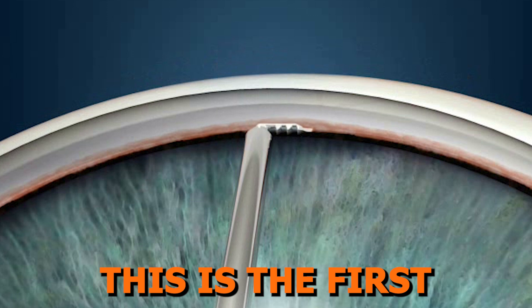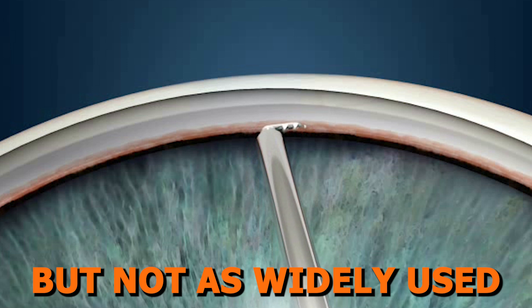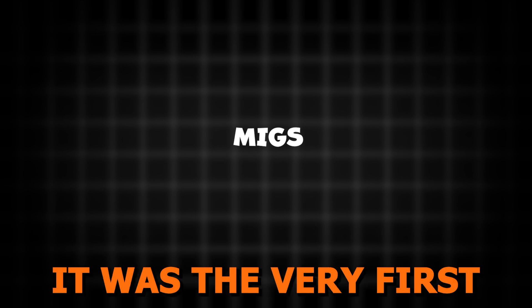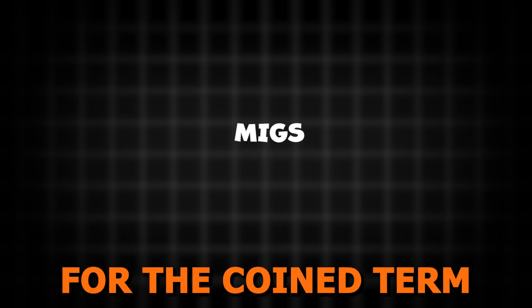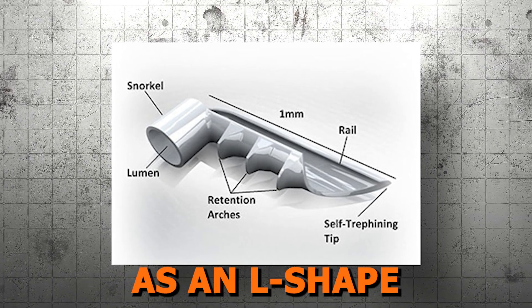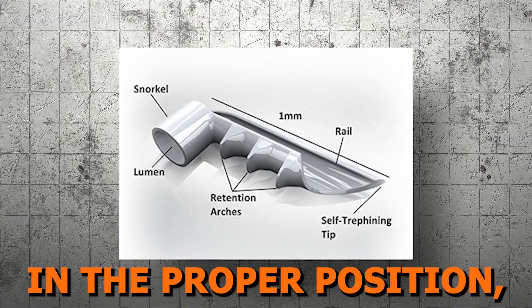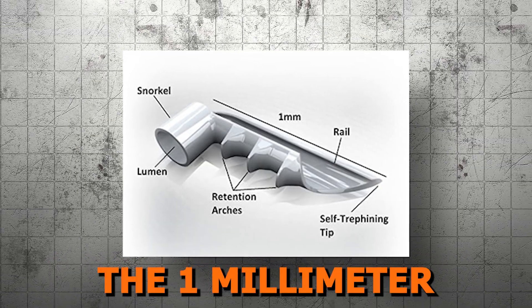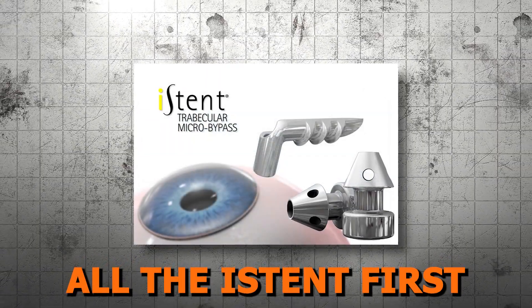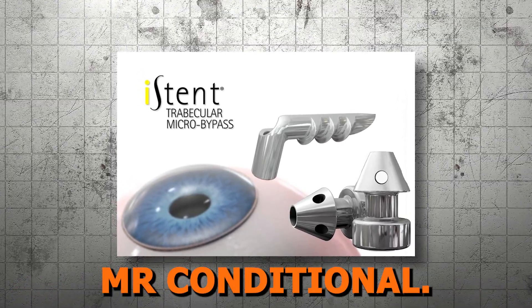First up, we have the iStent. This is the first generation of the iStent family and is still manufactured, but not as widely used now that the second and third generation are available. What is unique about this device was that it was the very first of the micro stents and is responsible for coining the term MIGS, or microinvasive glaucoma surgery. It is designed as an L-shape with a snorkel and lumen that provides aqueous direct access to Schlemm's canal when the device is seated in the proper position. The retention arches help to keep the 1mm length stent in place after the tip pierces through the TM. All the iStent 1st, 2nd, and 3rd generations are made out of heparin-coated titanium and are considered MR conditional.